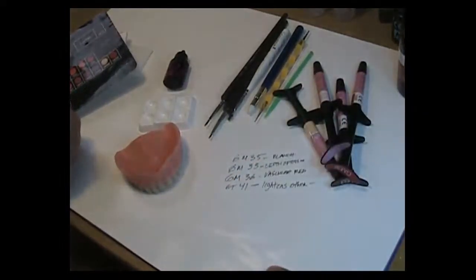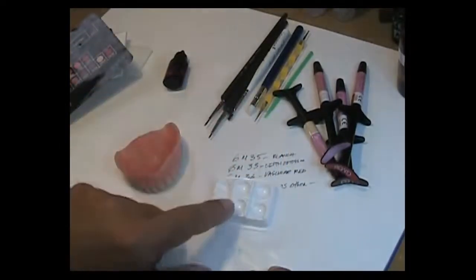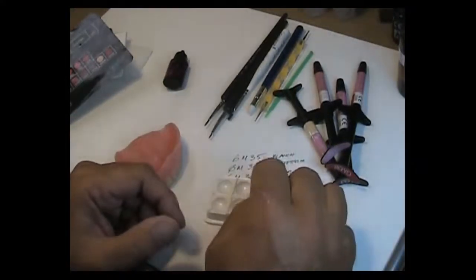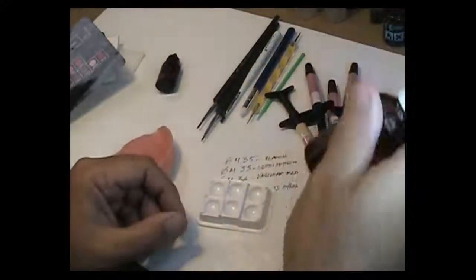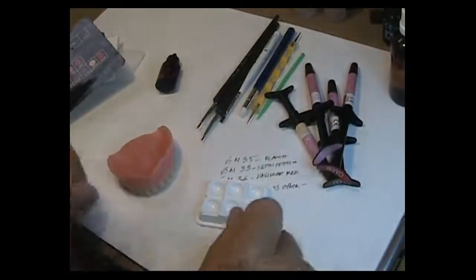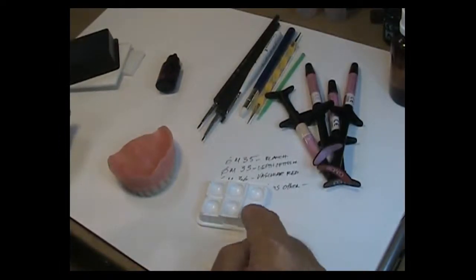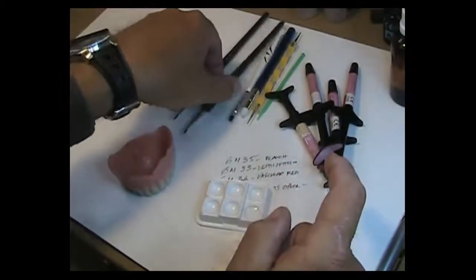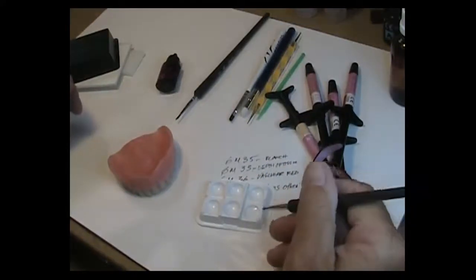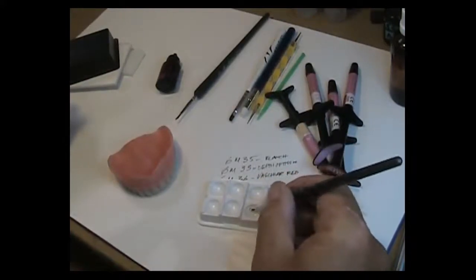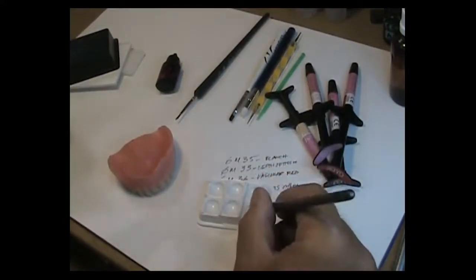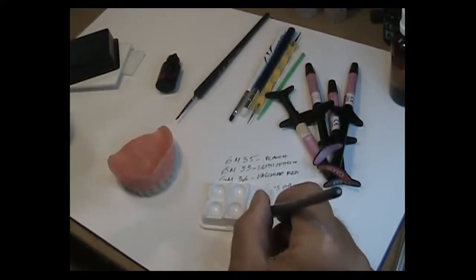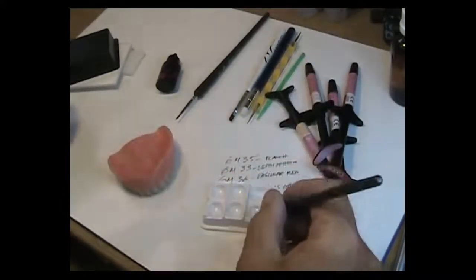Just four syringes of product. And then of course you're going to have to use some sort of a little plastic well. Now these little wells I think that they were recommended for putting the colorants, the gum modifiers in, but I found that it works better if I use it to clean my brushes to be honest with you. I don't really put my colors in there because they're really tough to clean. I know they're disposable but I just think it's a mess. But after I've used the products on a certain brush and I don't want to influence the colors, what I'll do is I'll just wet my brush in the well and then I'll take a paper towel and I'll wipe it clean. This is a great little way. And by the way, that's isopropyl alcohol that we use to clean the composite materials off of the brushes.